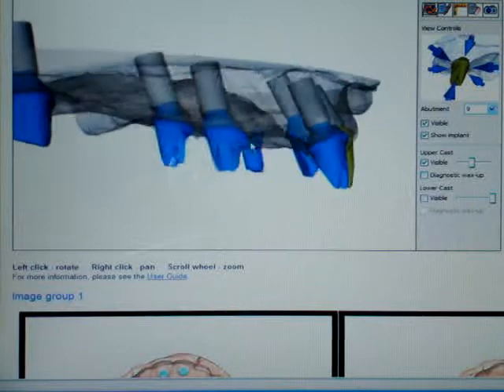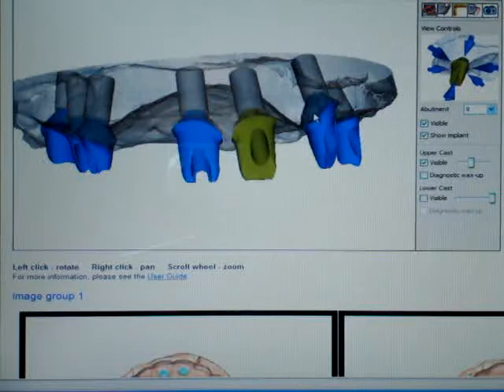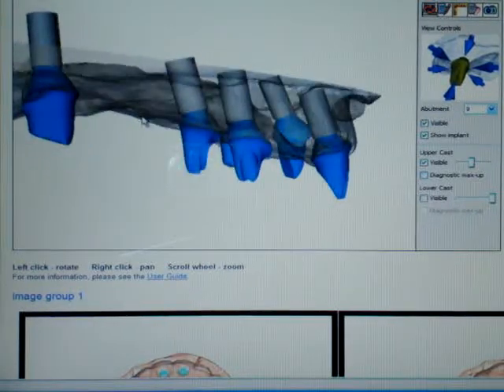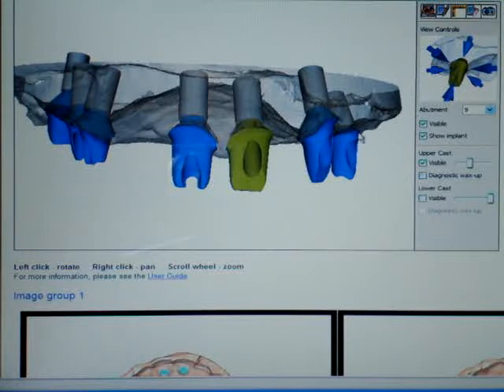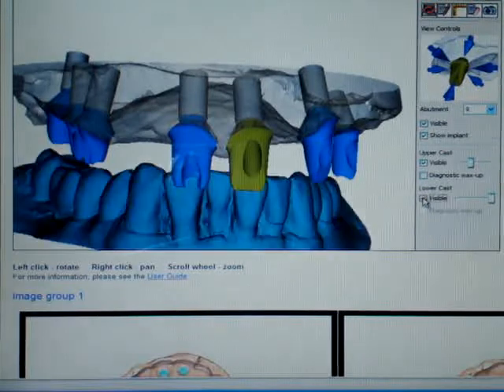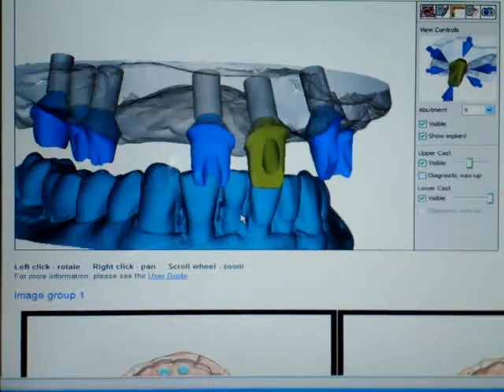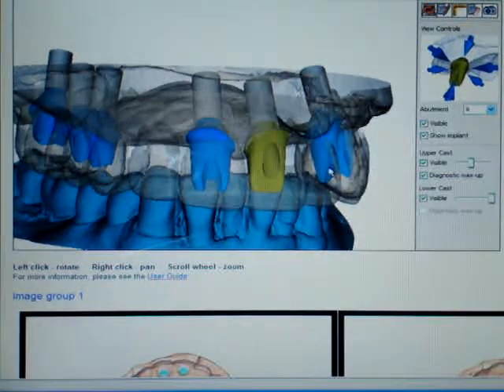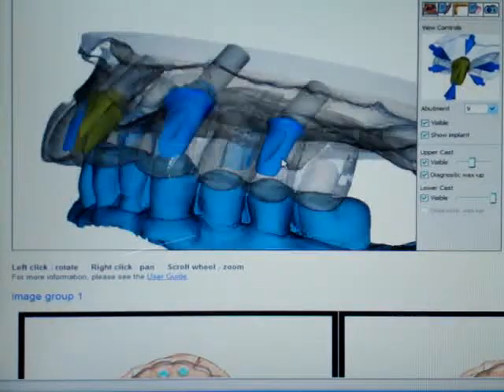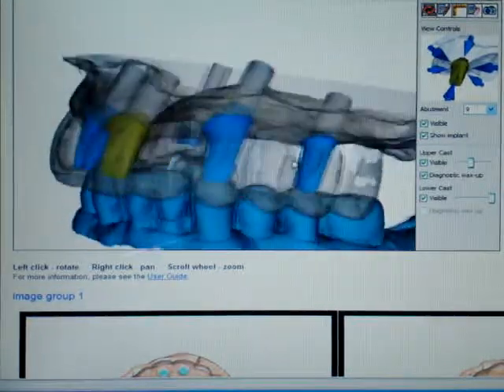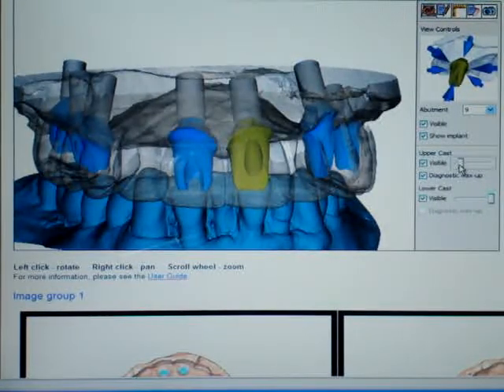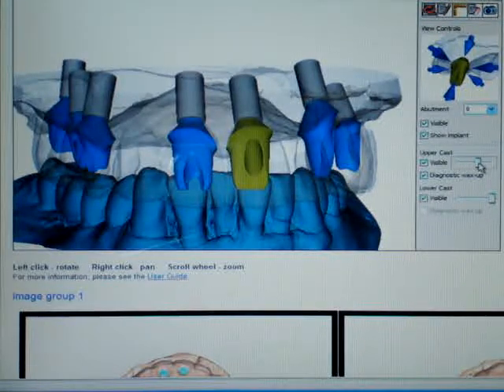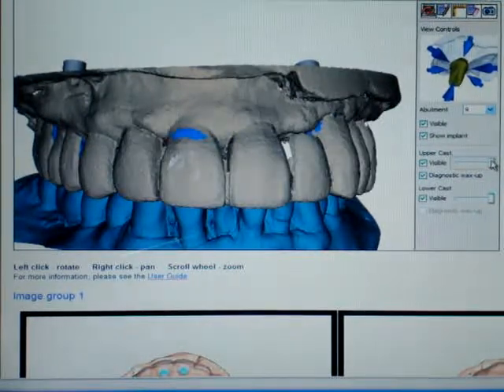I'm just giving you an idea, not necessarily a full course on this, but you need to find out, is this the best position? And if not, you need to let the company know. And there are ways to do that. Right now, I'm going to go ahead and click on make the lower cast visible. So you'll get to see that. Now that's the lower cast. And we're going to go ahead and put the upper diagnostic wax in place. So there's the upper in place. That's a simple thing to do. And then you can also make the upper more opaque or less opaque depending on what's necessary.